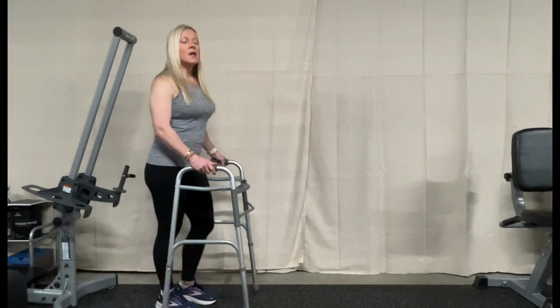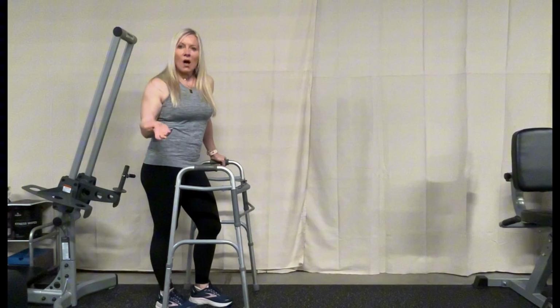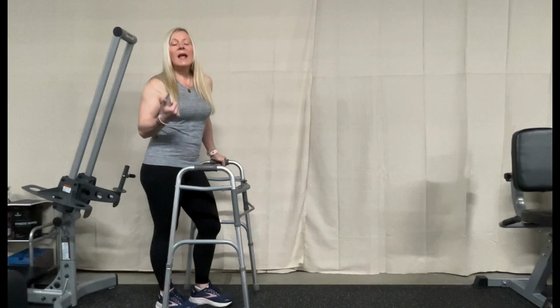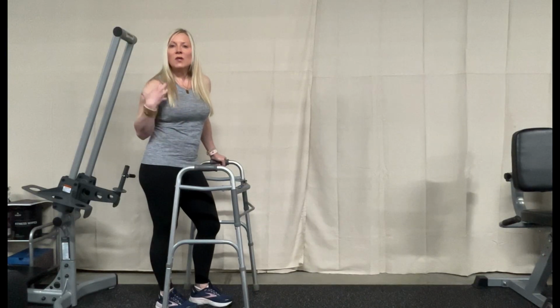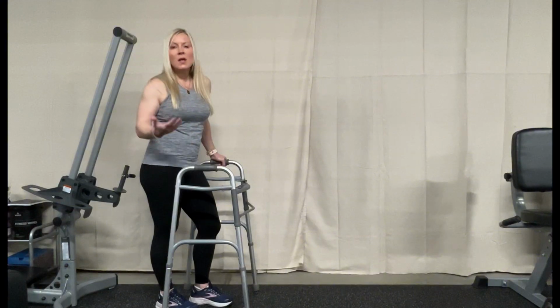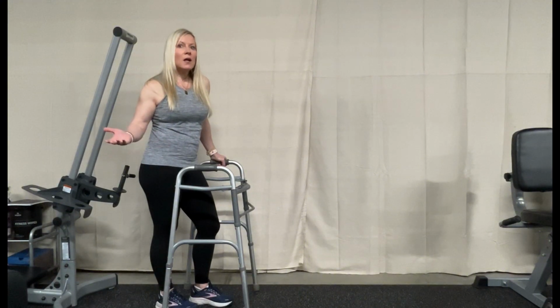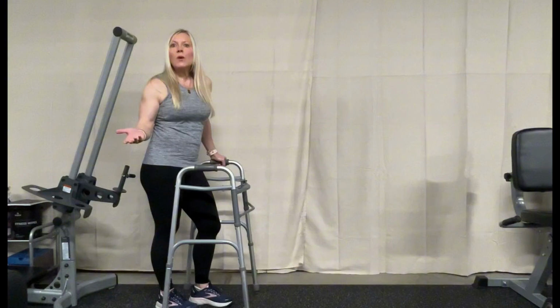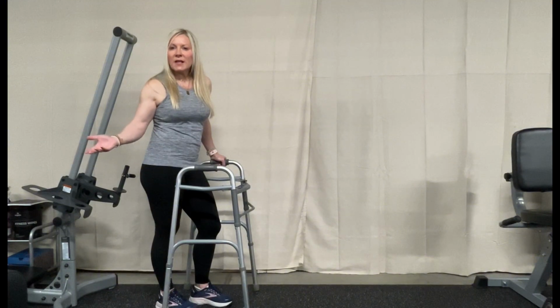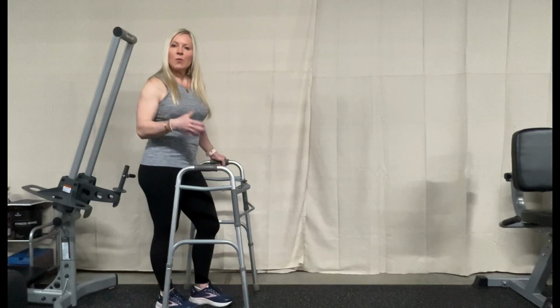Let's say someone who has had a fall, was in the hospital, very deconditioned, a wheeled walker is much better for someone who doesn't have that upper extremity strength. So someone who has had the flu or pneumonia, they've been sick for a couple months, they had to go into the hospital for, let's say, a week, and then they had to go to a rehab facility. They're not quite as strong in their upper extremities. So it's better to have a wheeled walker.